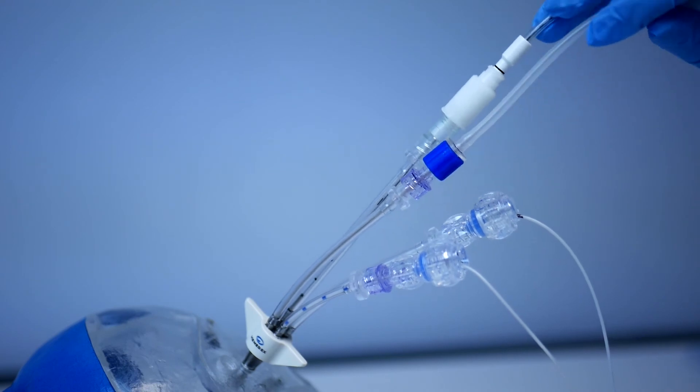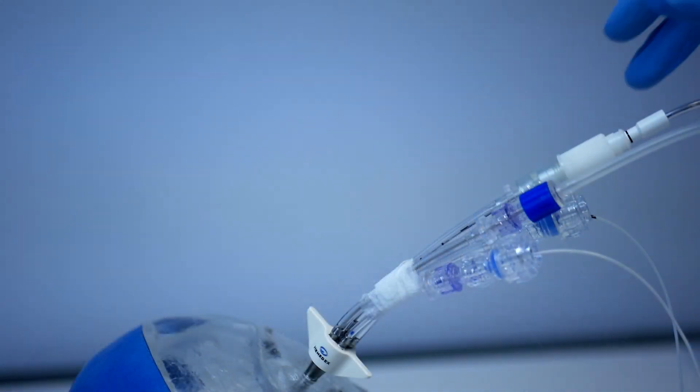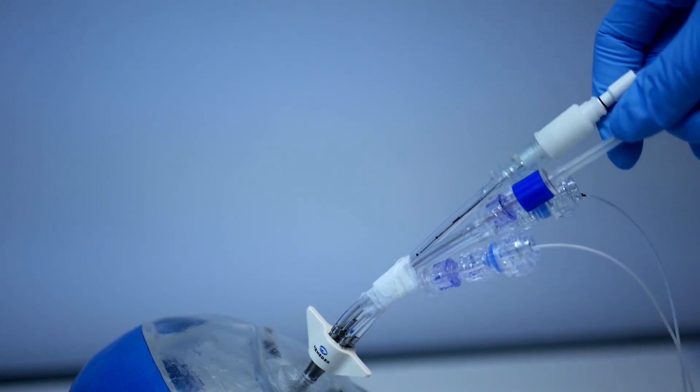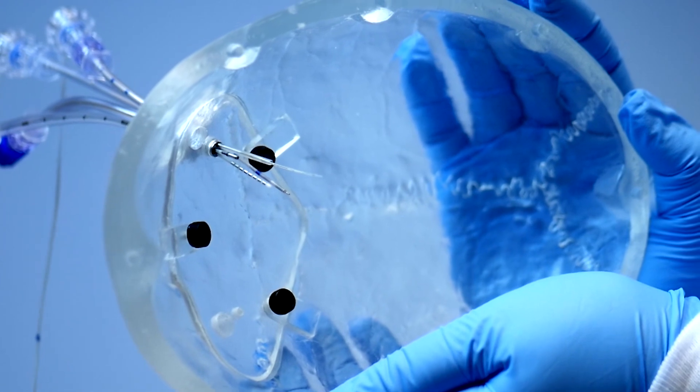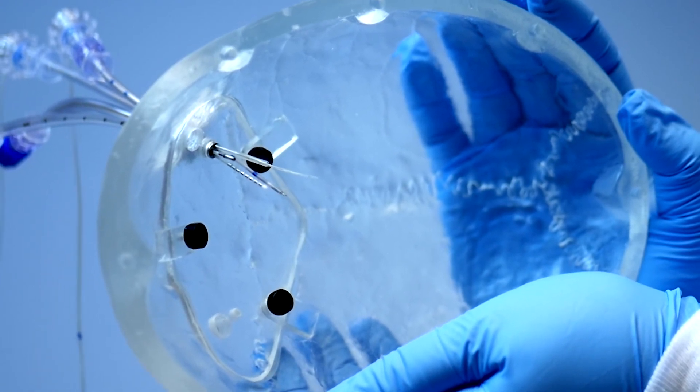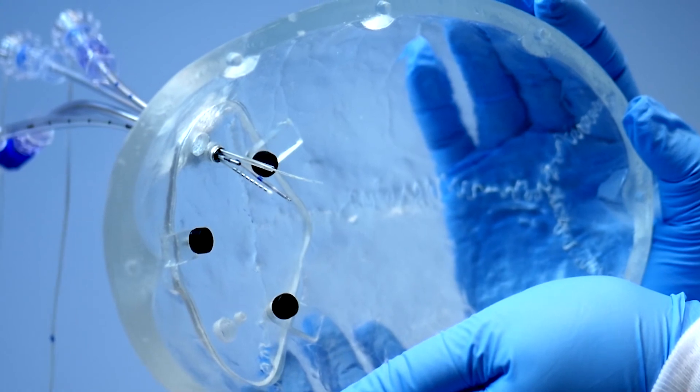The QLB pigtails were made flexible by design. Banding the pigtails together with medical tape will minimize the motion. All four probes inserted through small to large pigtails are perfusion, depth EEG, Lycox, and the Integra Camino ICP.